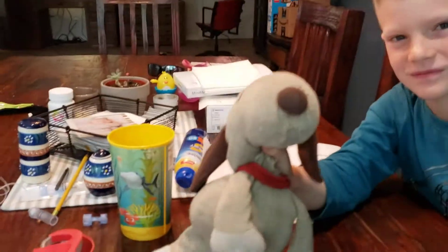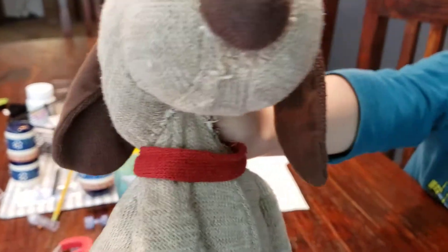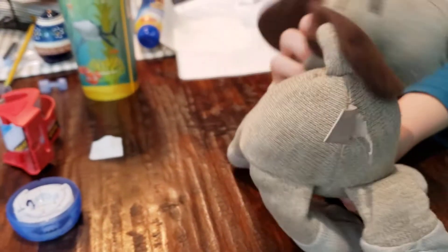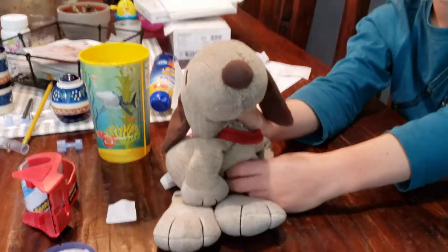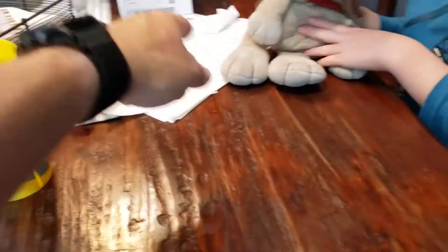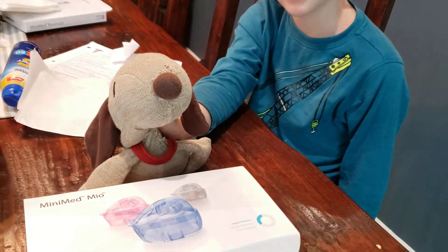That's it. That is how to do a site change with an annoying little brown Snoopy that likes to pop on camera because it's his first time on YouTube. All right, so that is a 670G MiniMed — the MiniMed Mio site change, and brown Snoopy messing everything up.